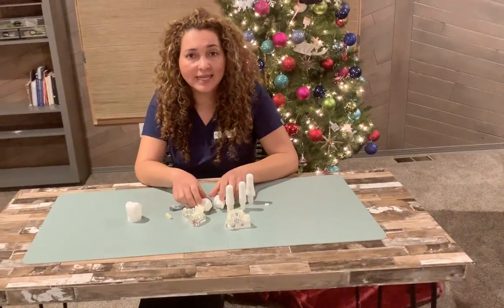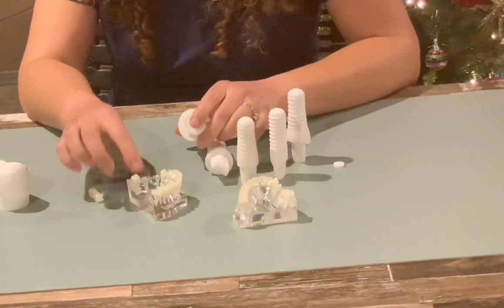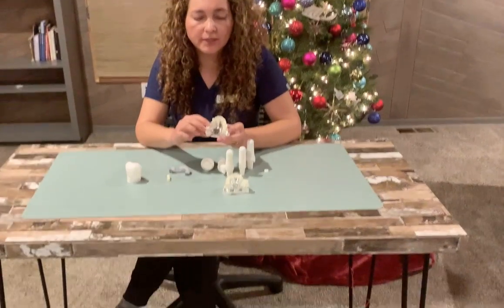Then you go with an Essex. The Essex is a translucent retainer that you're going to use until the implant osseointegrates. When the implant fully integrates, we move to the next step.